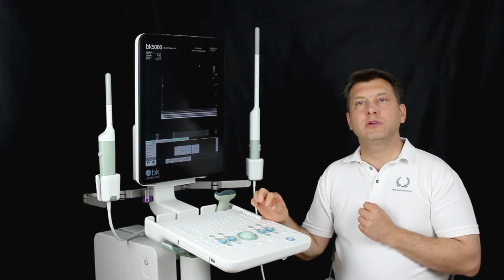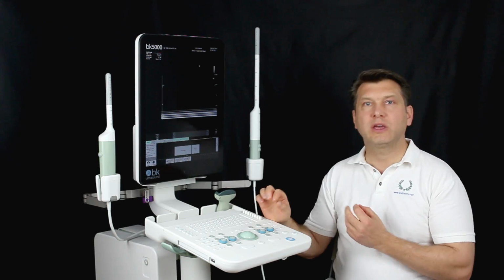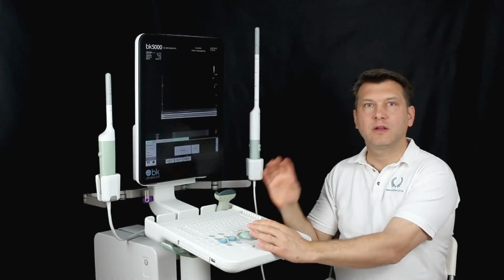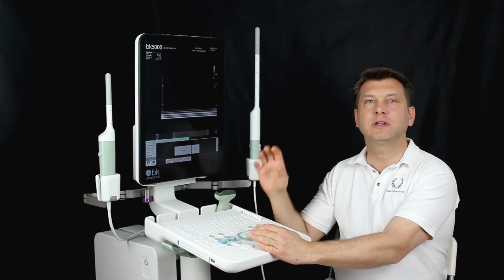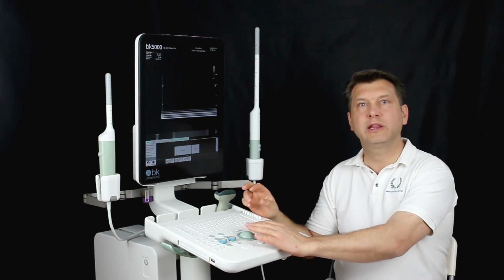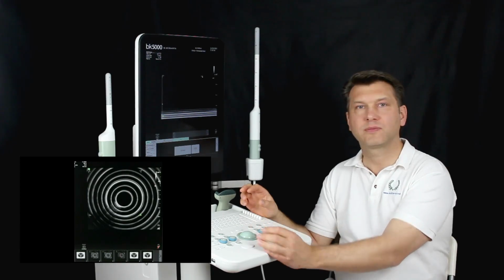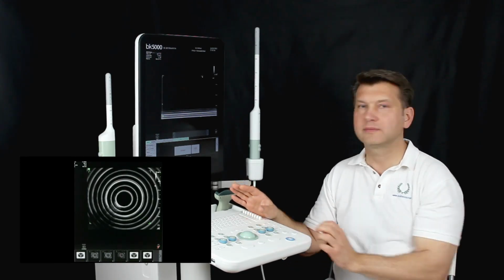Here we have to make sure that the 3D frames capture the areas that we also want to examine. We can adjust this area manually. To do this, we slide our cursor onto a corner of the frame so that it appears green. Then we click the cursor and move the frame as we need it. As soon as this is correctly positioned, we click again.